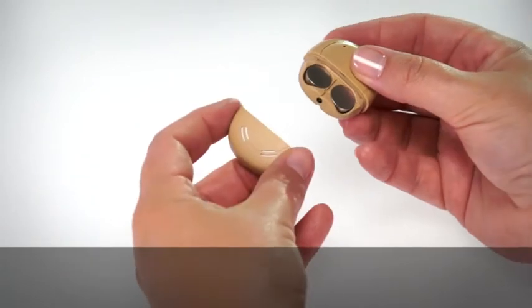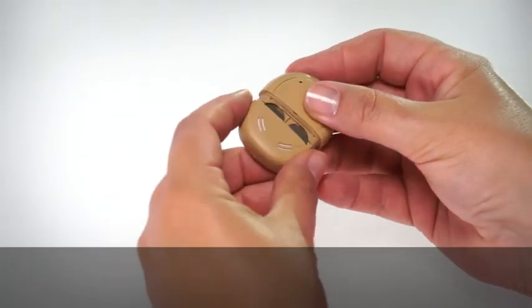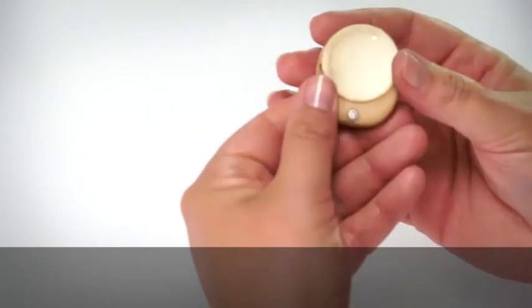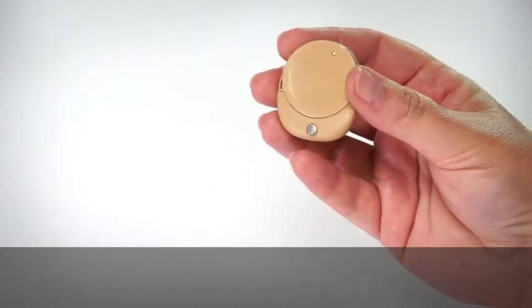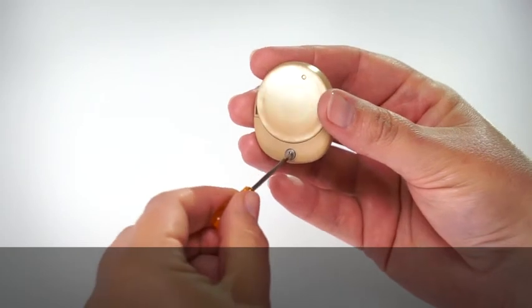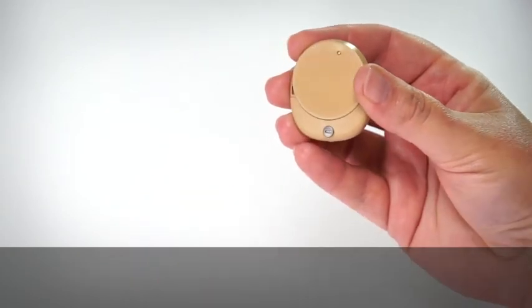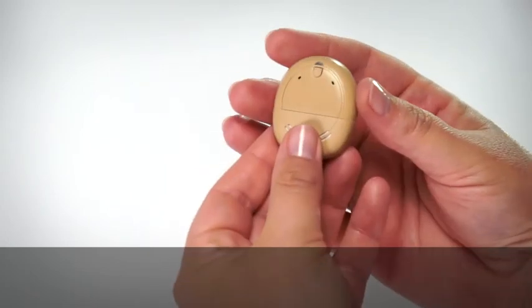Replace the battery cover and lock the cover if required. Your Kanso will automatically turn on.